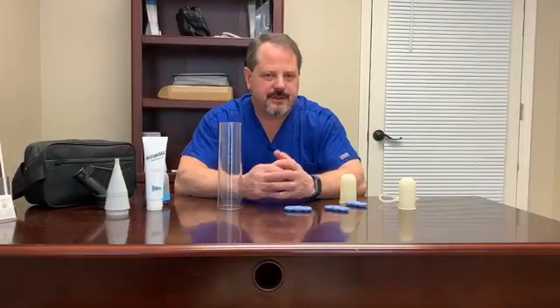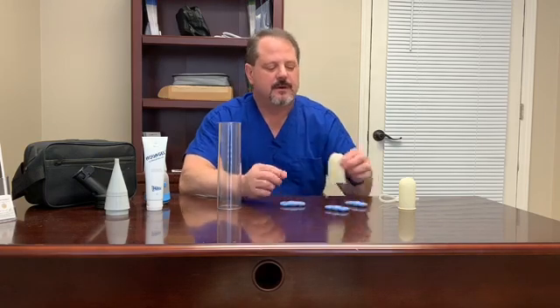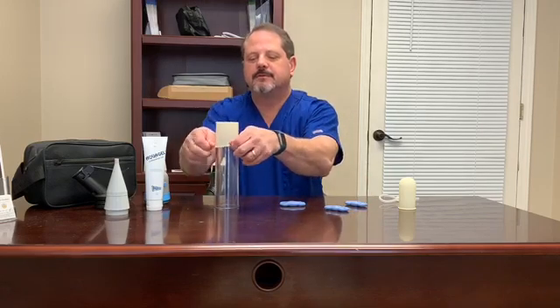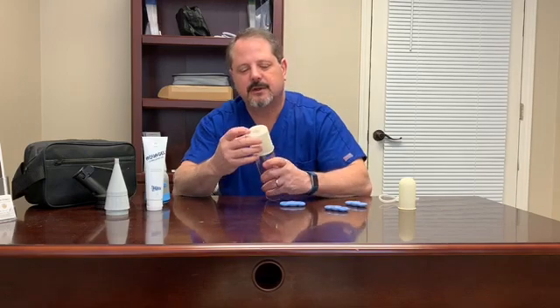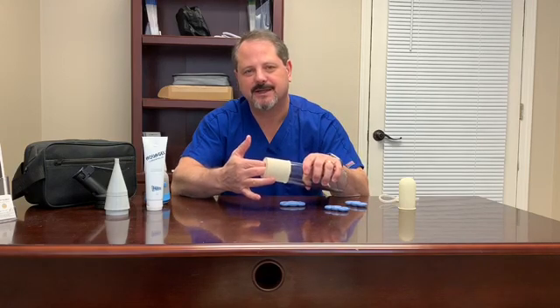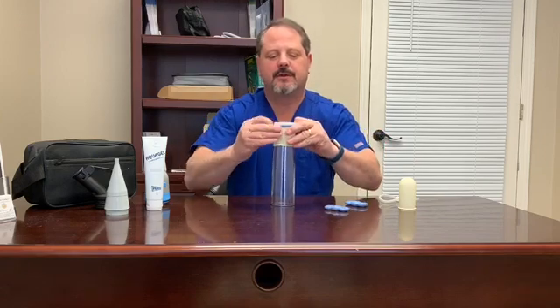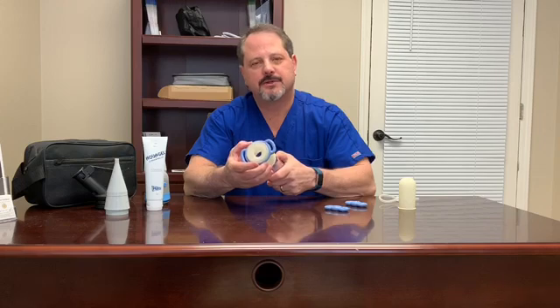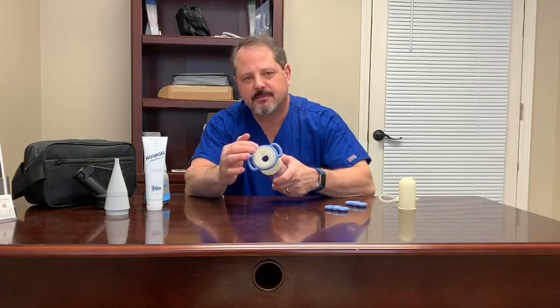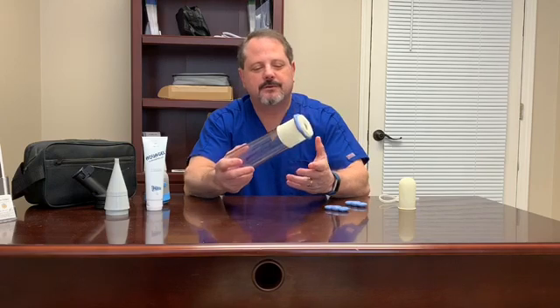The third way to get a seal is by using the easy seal with the traditional tension system. We'll use the ultimate blue band today because of easy transfer. The easy seal goes over the end of the cylinder that the penis goes into, acting as your seal — so you don't have to use lubricant. It flexes around the shaft of the penis to maintain the seal while you create your vacuum. Take your tension system and go over the end, pulling it fairly close to the end. If you're having difficulty transferring the band, you can also put a little lubricant around there.